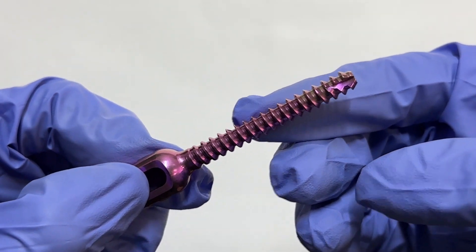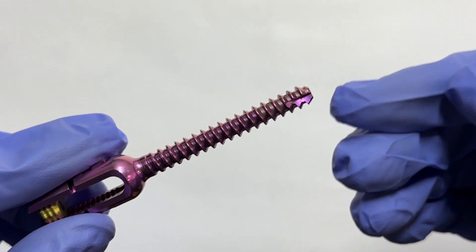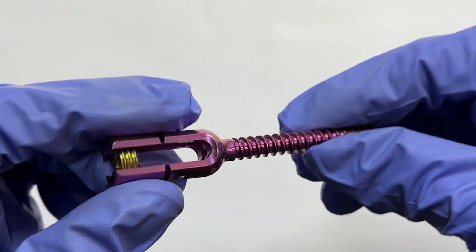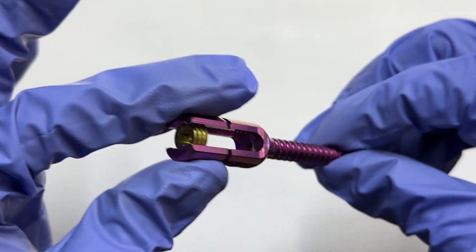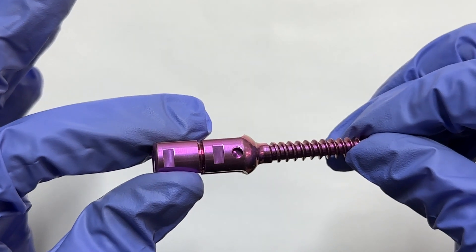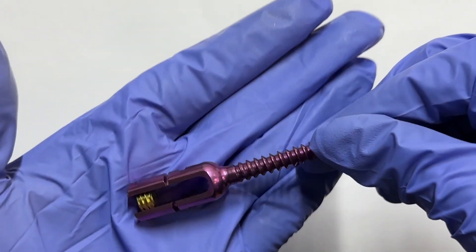Secondly, they correct deformities with meticulous control, addressing spinal irregularities. Lastly, they play a crucial role in facilitating fusion, creating an optimal environment for the fusion of spinal segments.